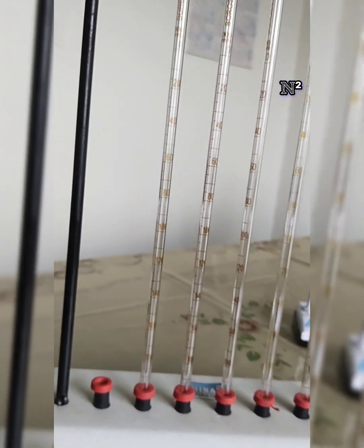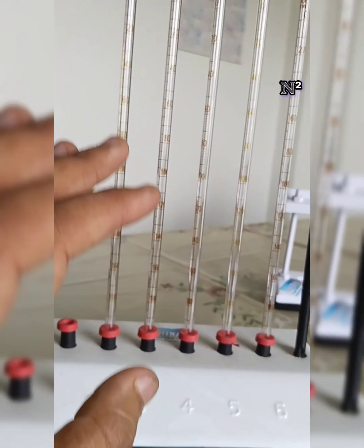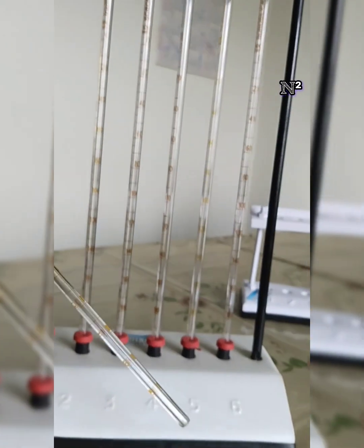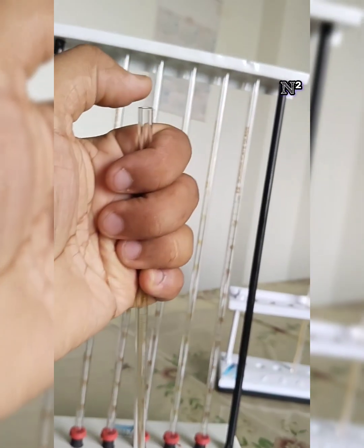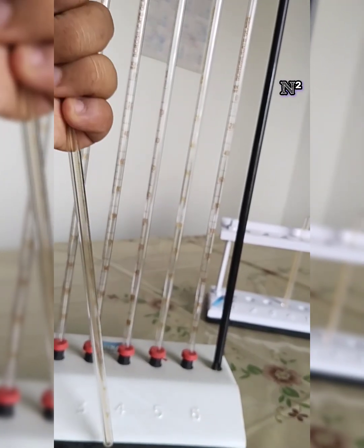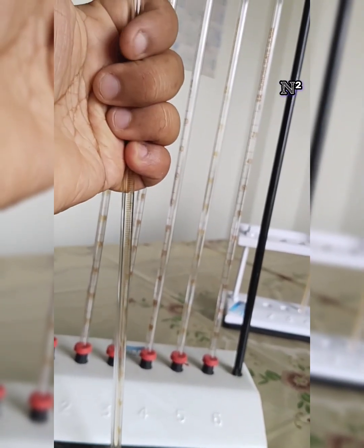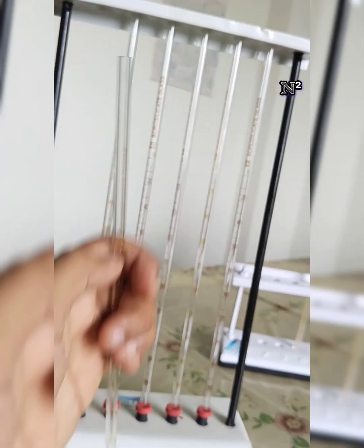While we are doing the experiment of erythrocyte sedimentation rate or the packed cell volume, since this is an open-ended pipette instrument, grabbing hold of the upper end of the pipette, we dip the distal end of this pipette inside the blood and blood diluting fluid or anticoagulant fluid mixture, and we draw the fluid by sucking this end and drawing the blood up till the zero marking.